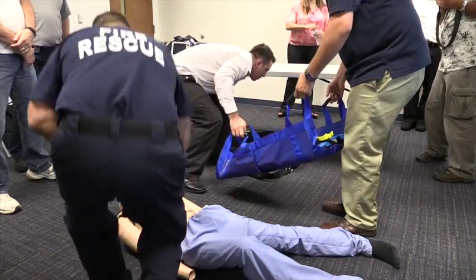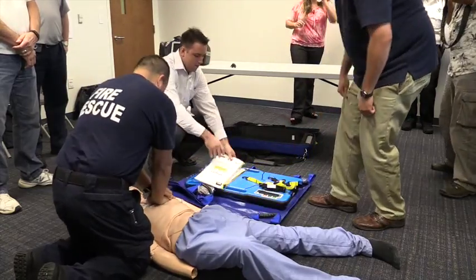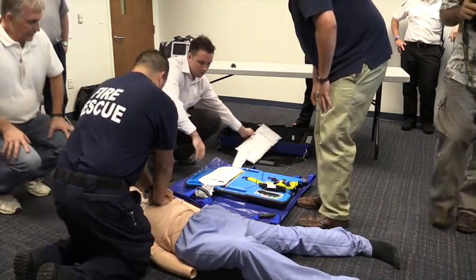Currently, if a citizen or a patient suffers cardiac arrest, we have to actually perform manual CPR. But in the best situation, performed in a lab setting, you're only going to get about 25% of what the heart actually does, doing perfect manual CPR.